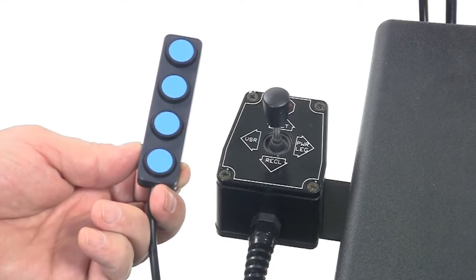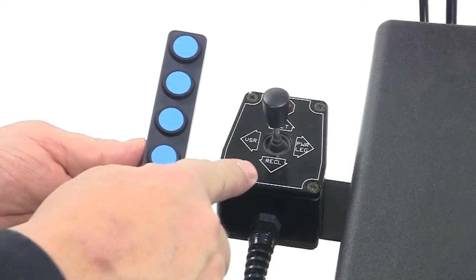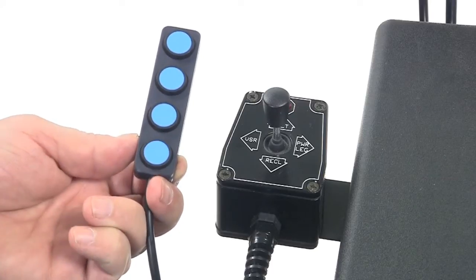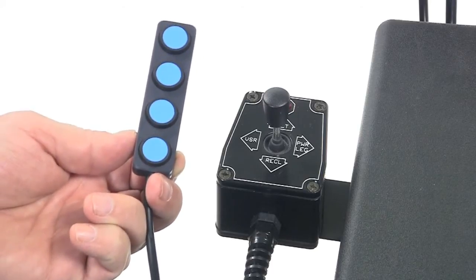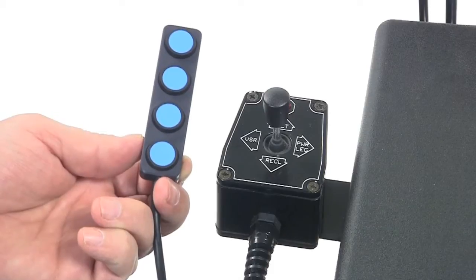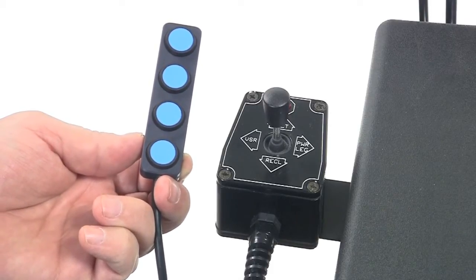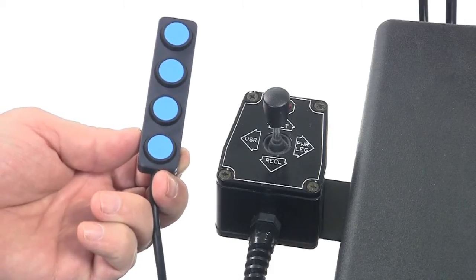Powered seating systems with multiple actuators use either a four-way toggle or a quad push button for operation. This switch will come on the chair pre-programmed and ready to operate, but can be reprogrammed or have the switch or button directions reassigned to meet the user's needs for power seating operation.